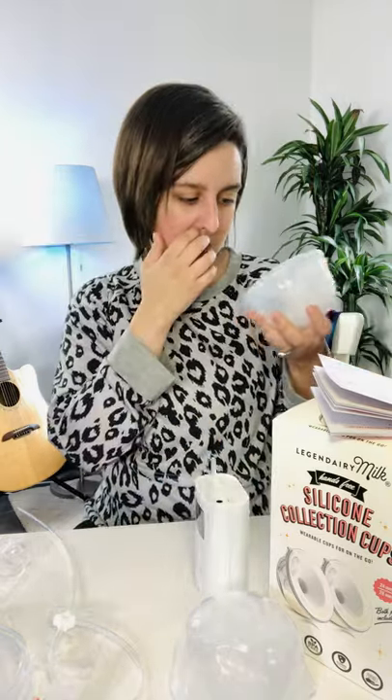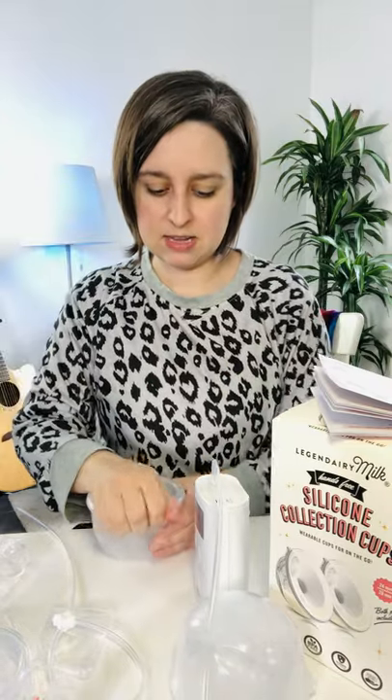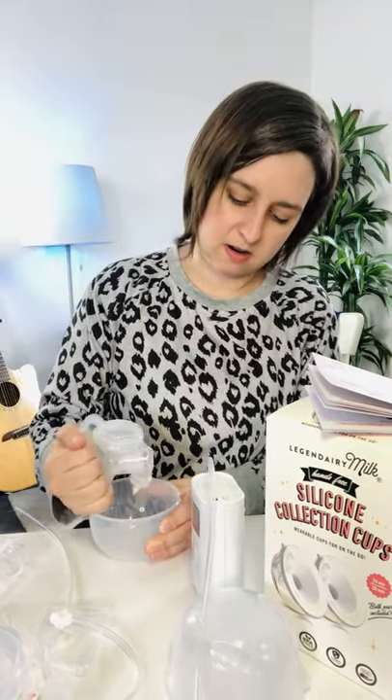No milk in the tubing — not ideal. It does have a flat bottom so you can set it down. It's got a little spout, so that's going to be a really easy pour. That was a sad test with my tiny milk output, but the little guy did better at eating before his nap than I thought. Very comfortable, I like the silicone, easy pour, easy assembly, plenty of adapters.